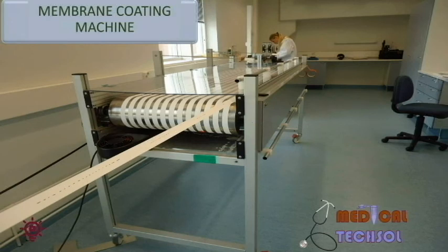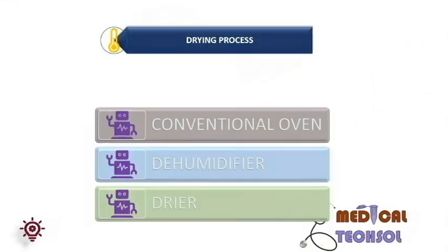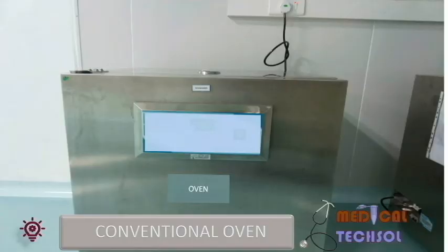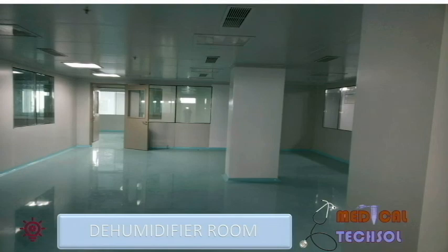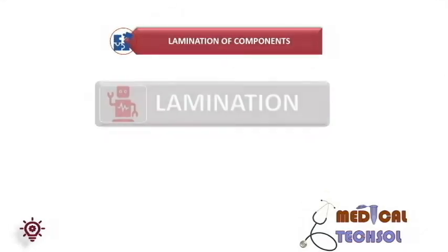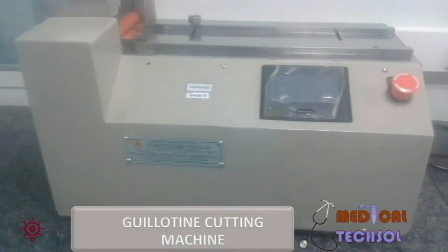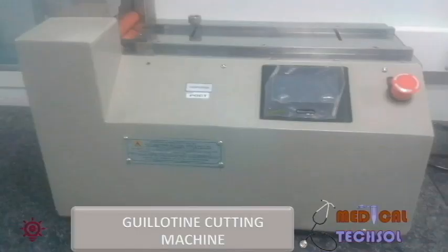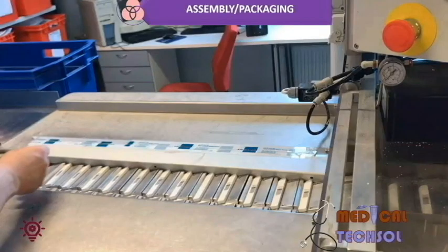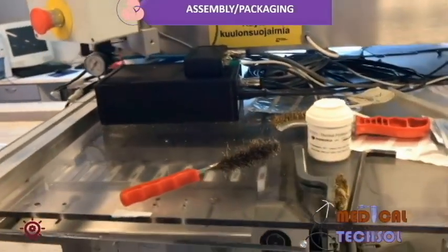This is a coating machine where antigen and antibody are coated on the membrane. Conjugate is sprayed using this machine. A conventional oven is used for drying. This is a dehumidifier room where the relative humidity (RH) is controlled by a dehumidifier machine. The dryer is attached to the machine. Here you can see manual lamination of the components. Cutting is done by the guillotine cutting machine — a typical guillotine cutting machine used in rapid test manufacturing. For assembly and packaging, top and bottom parts are pressed and moved on a conveyor belt, and then the pouch is sealed in a machine.